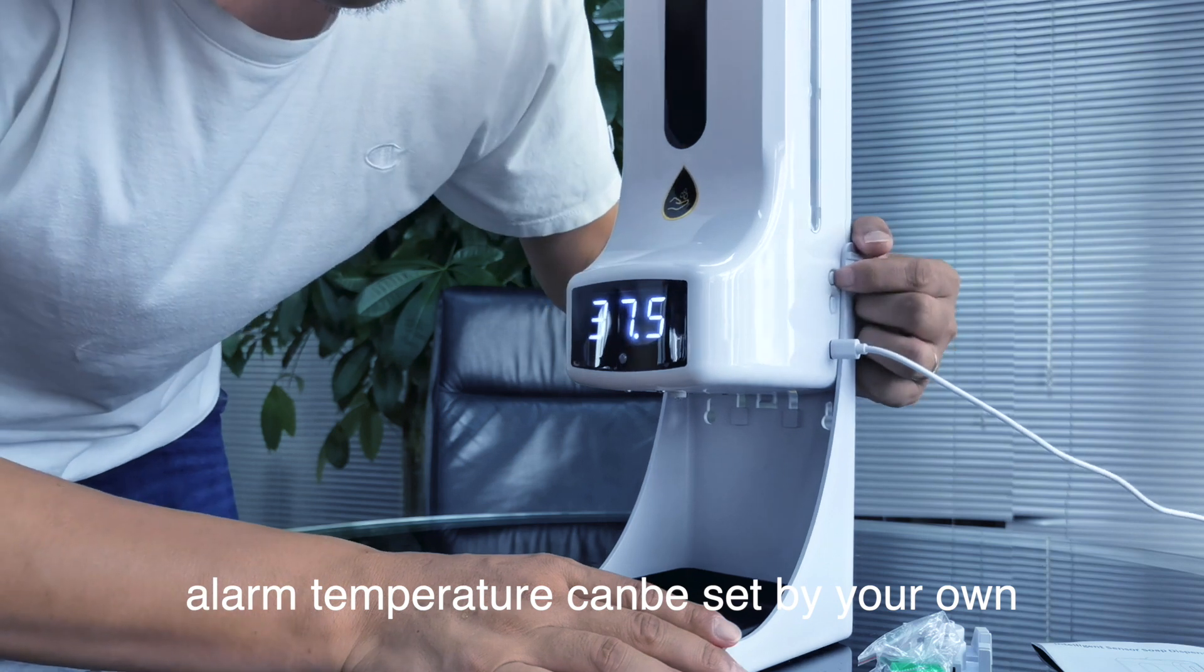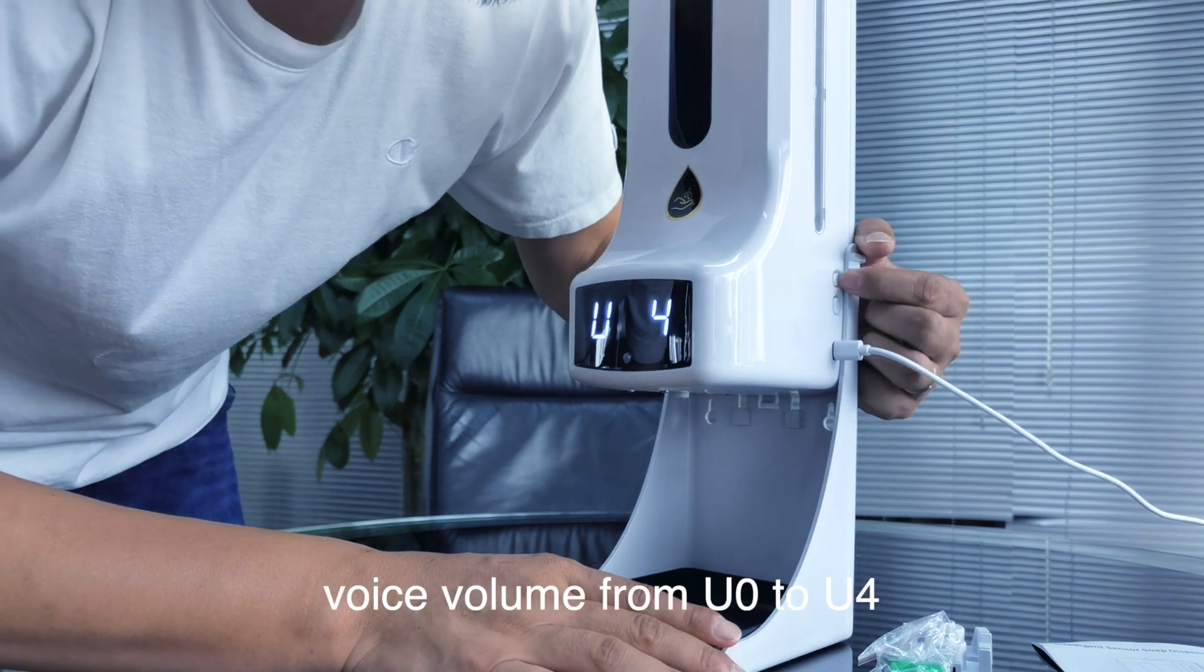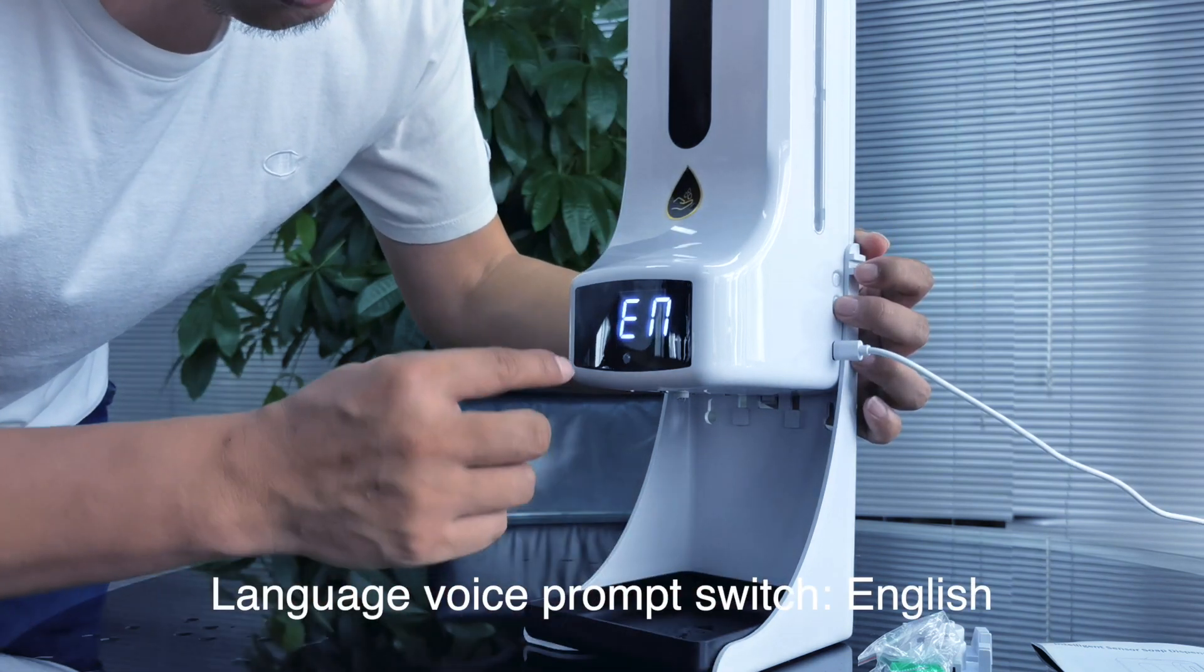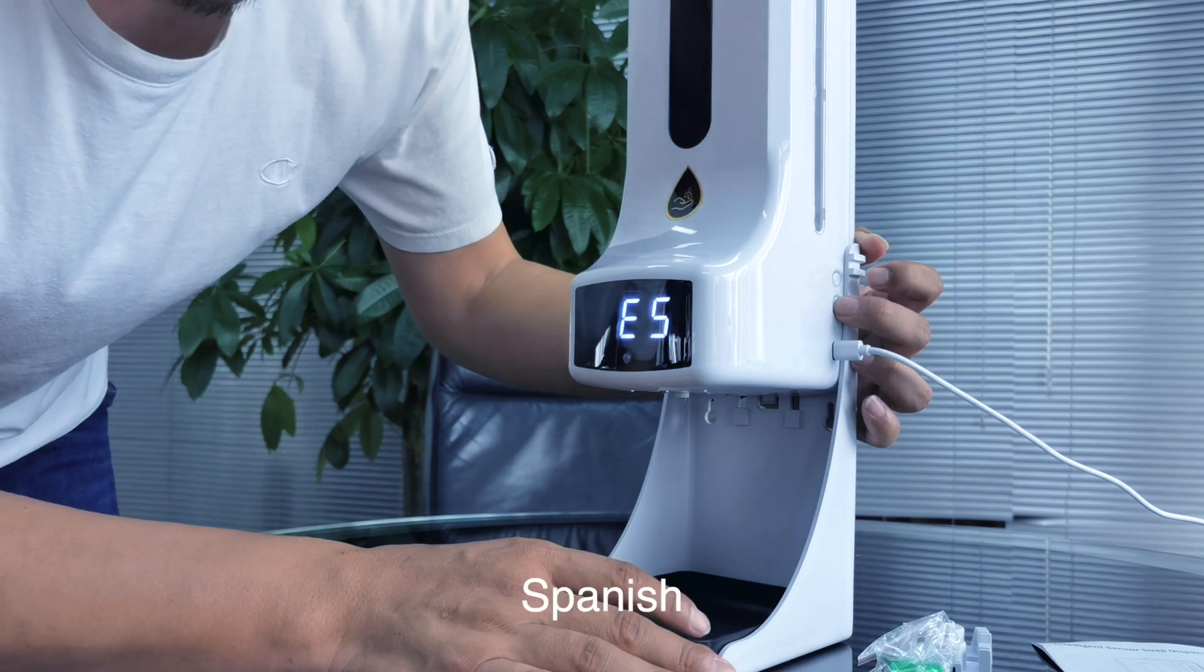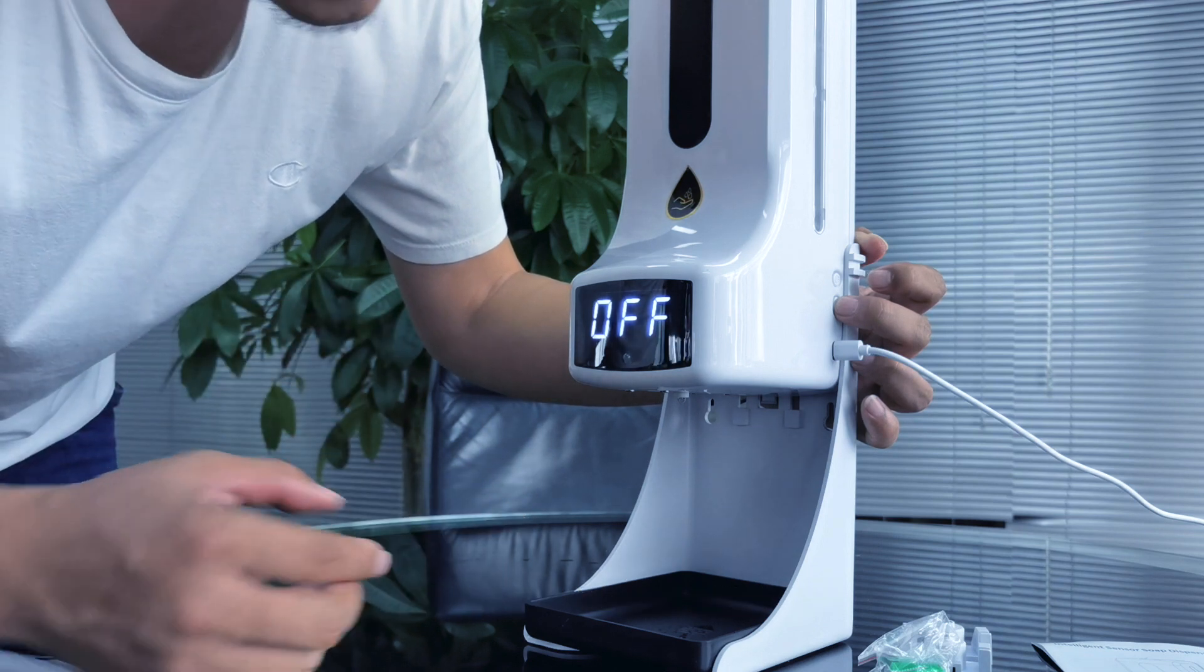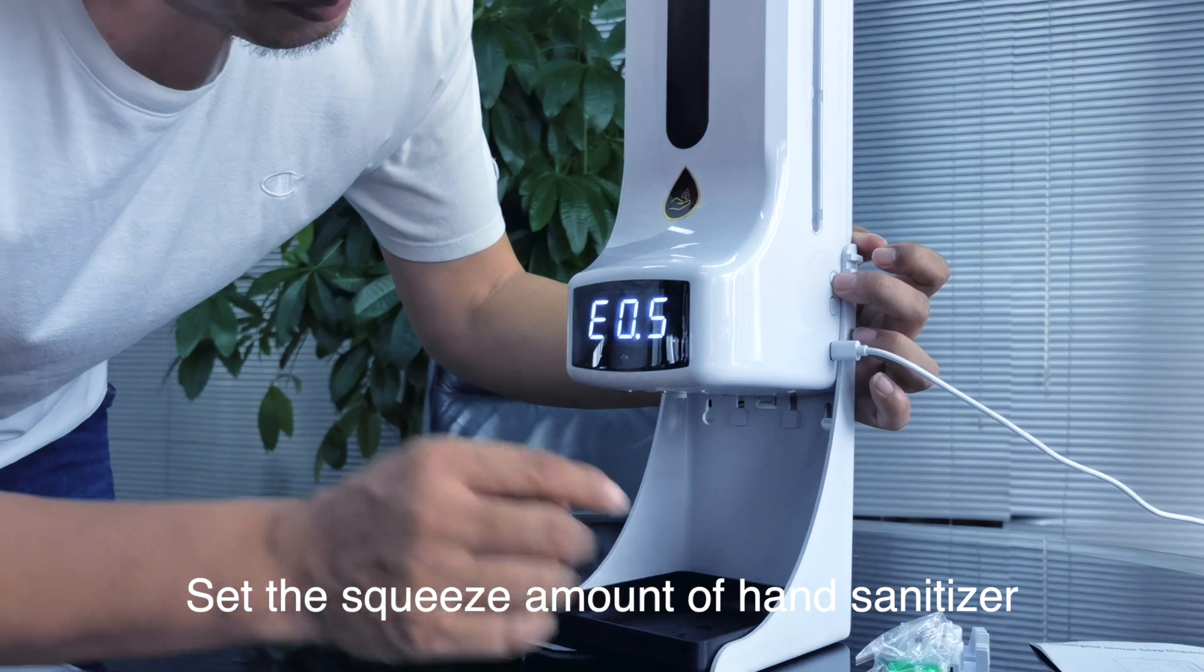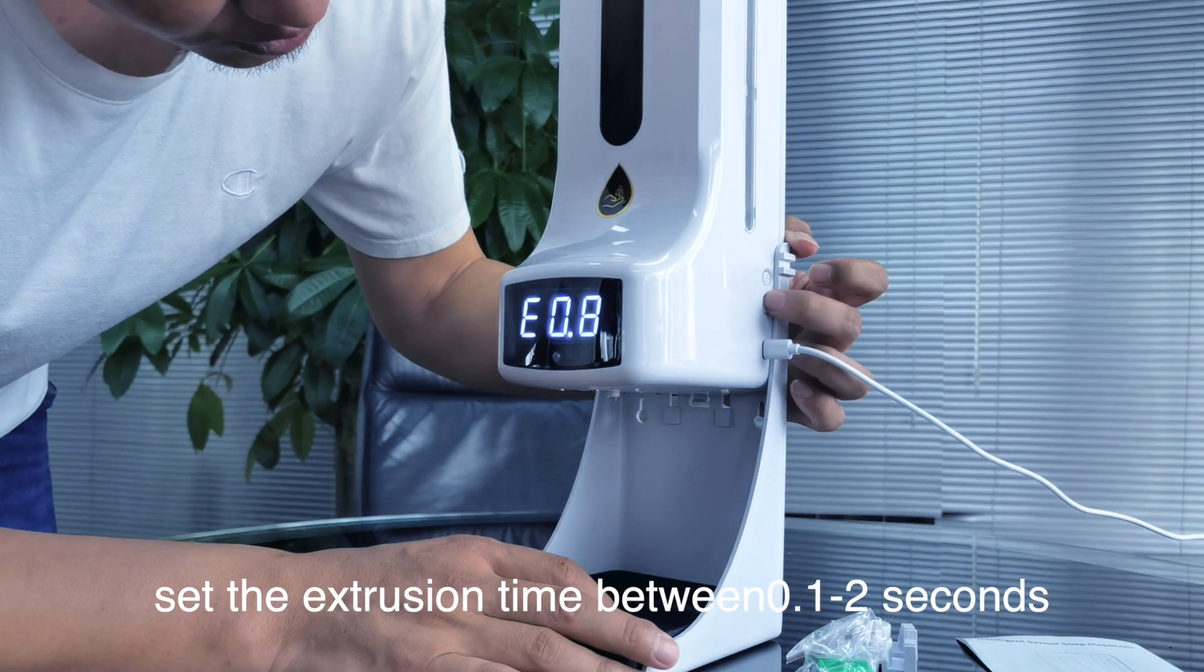And this is level three, level four. Change language here. This is English, Korean, Portuguese, Spanish. So you can switch off the language voice. And this is the volume of the dispenser, switch here.